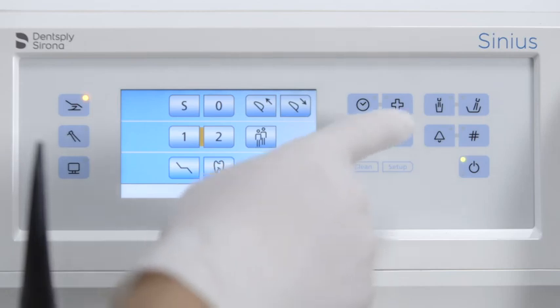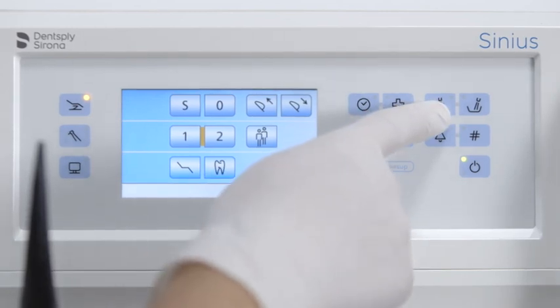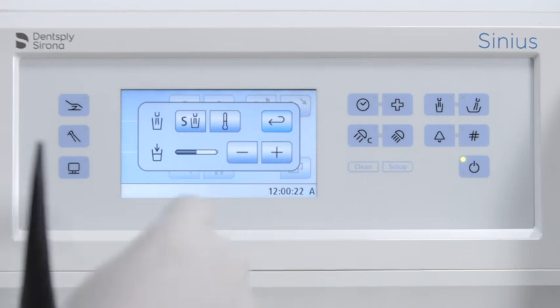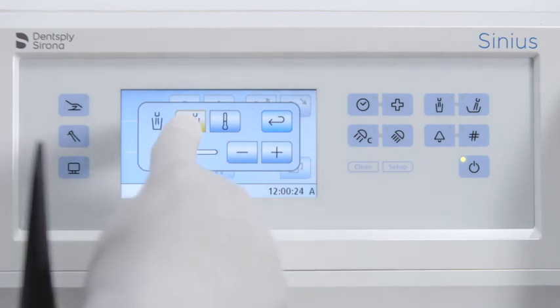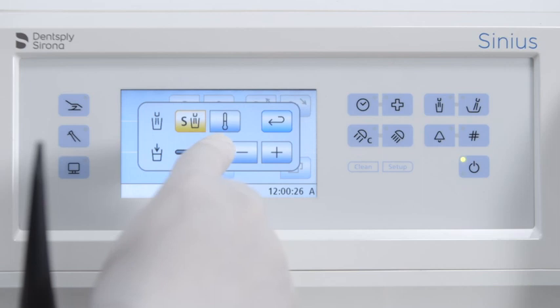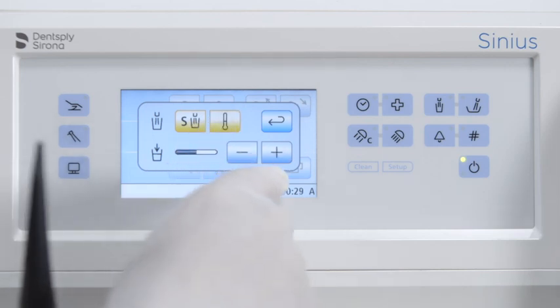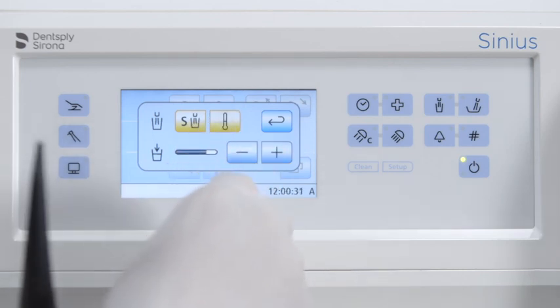Press and hold the tumbler filling button to go to the sub-menu. You can link the rinsing quantity of the tumbler to the rinsing position button here, among other things. Furthermore, the water tempering can be activated and deactivated and the filling quantity set.